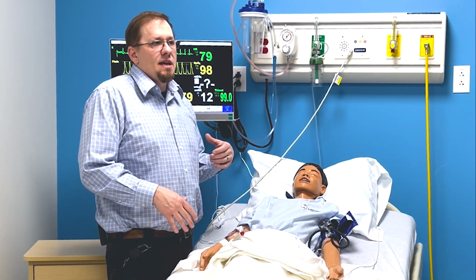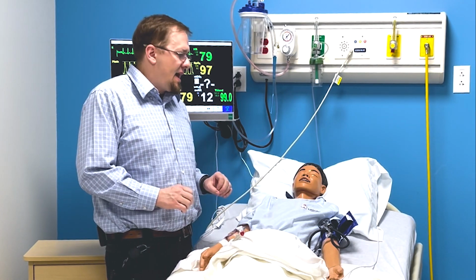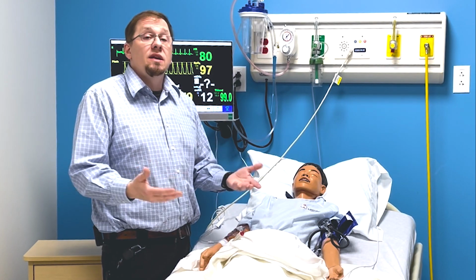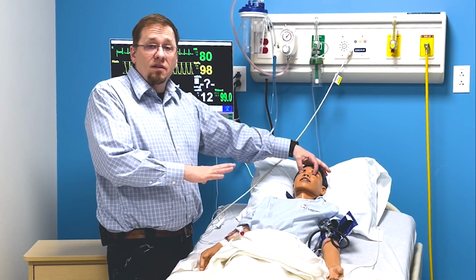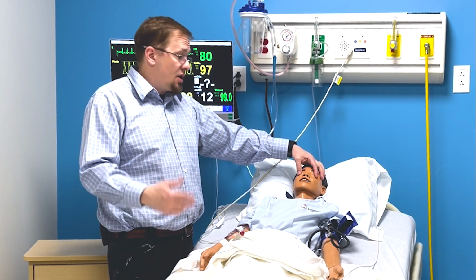You don't need to interpret or think about what they mean. So speaking about moulage, which is the fancy word for the blood and guts makeup and things like that, I'm going to make it pretty obvious that something is wrong and you need to do something clinically for it. But pupils, this one here are fixed. You're going to check them, get a response from the patient, and go on.